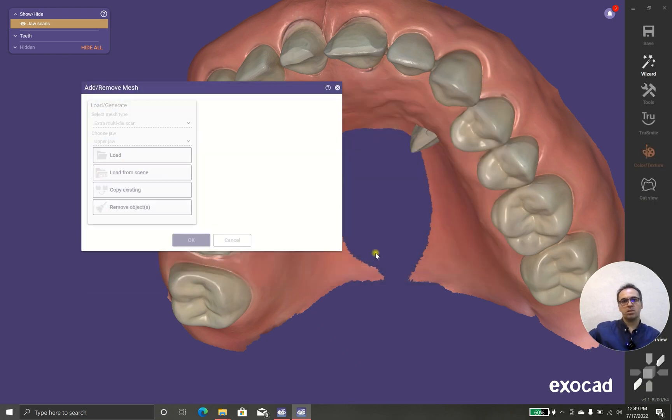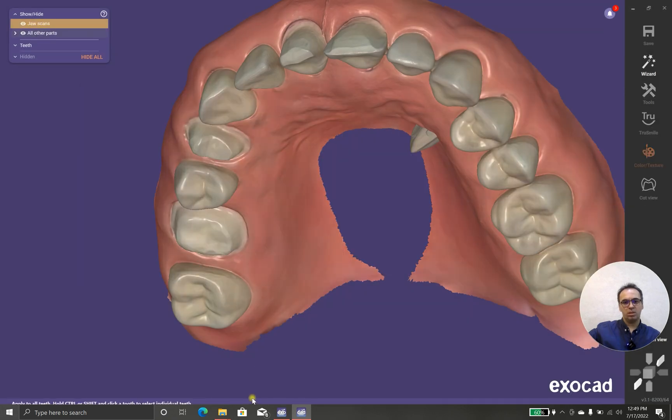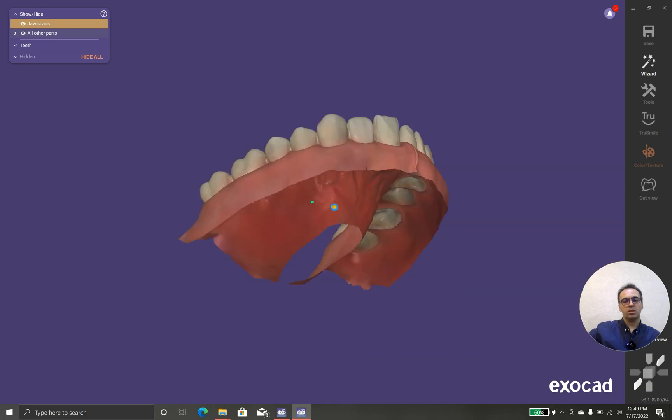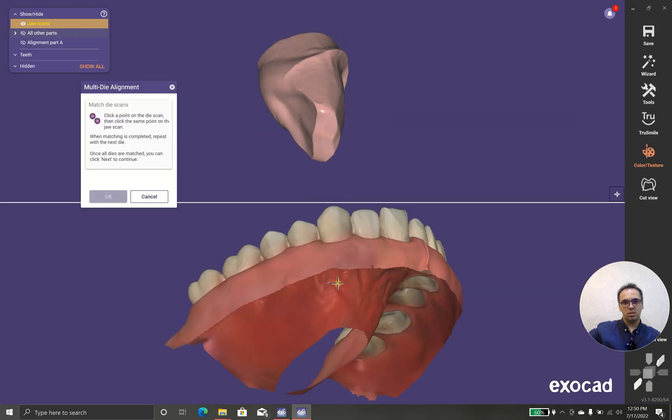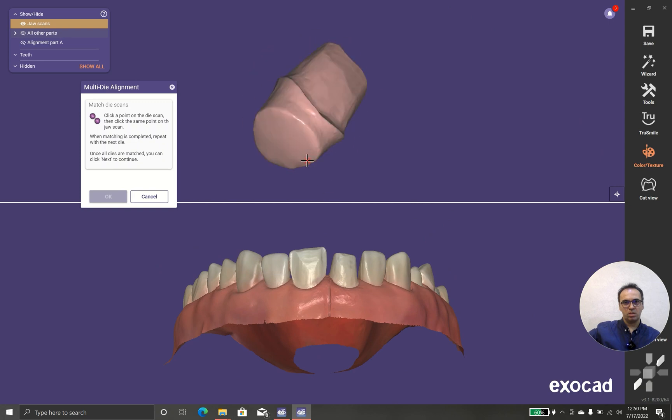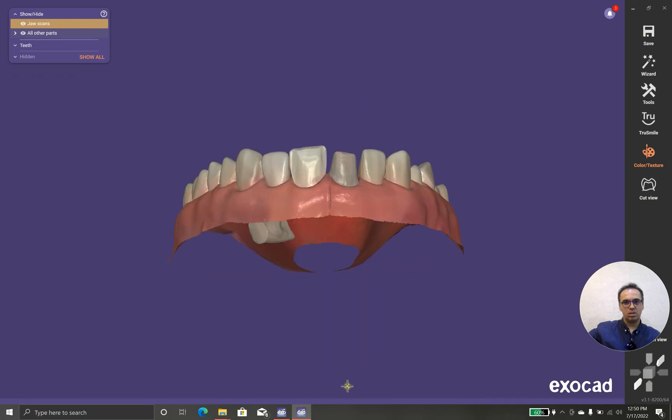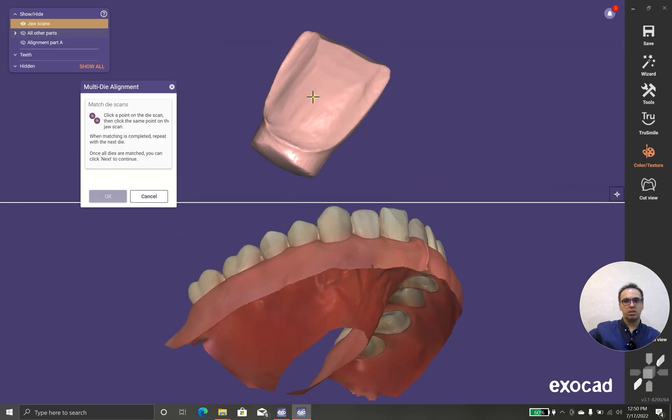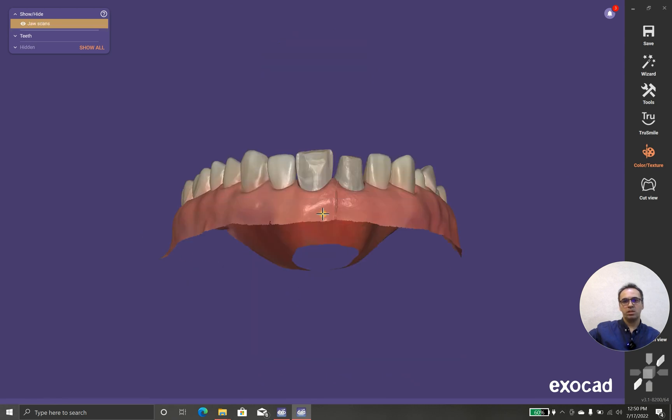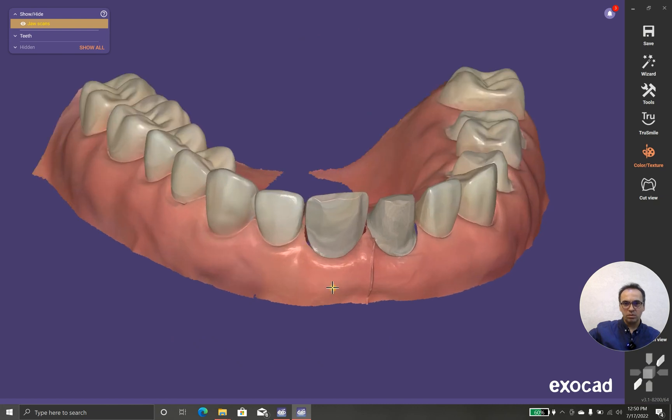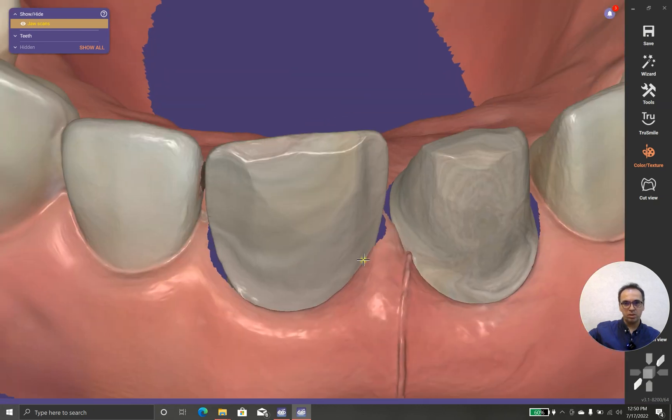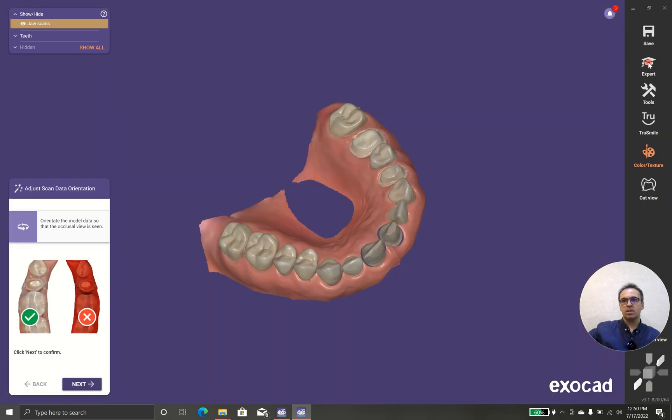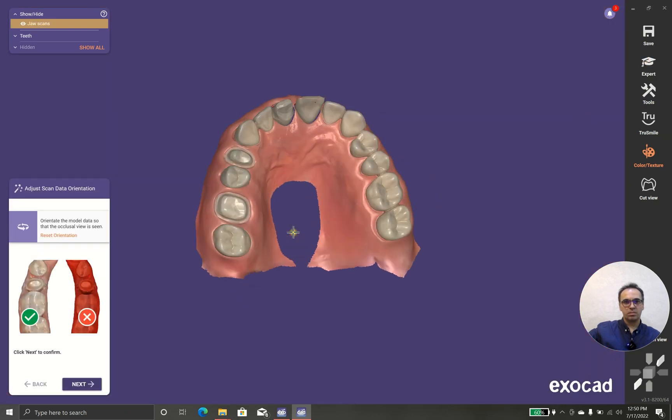And now I want to do the multi-dies, so this is the first die, it should go here like this. And I have another die, I will use it. And this die is far better. One point here, one point here, and the AI works pretty well, it works pretty well. Look, now I have the margins pretty sharp. I'll continue to design and I will do as it says.